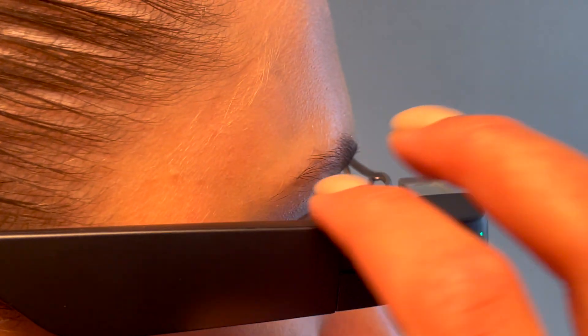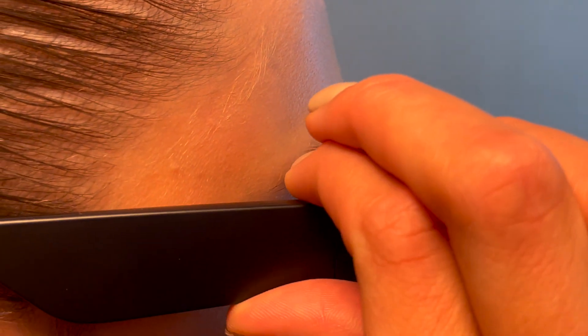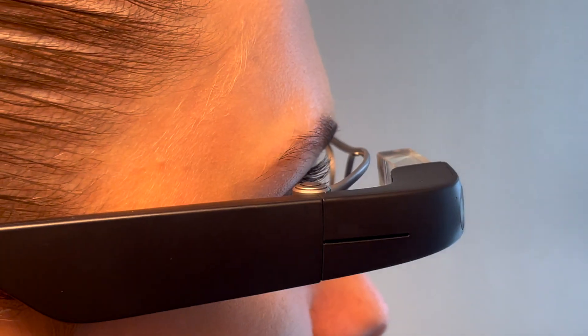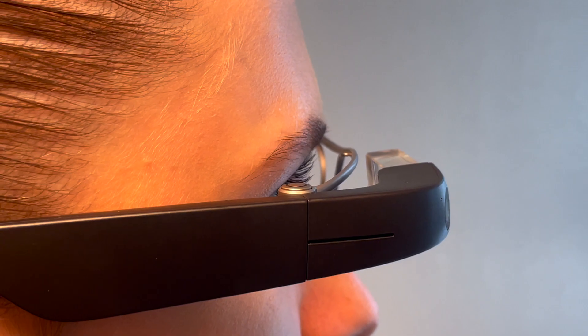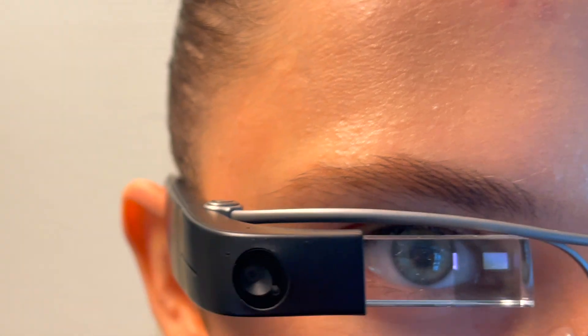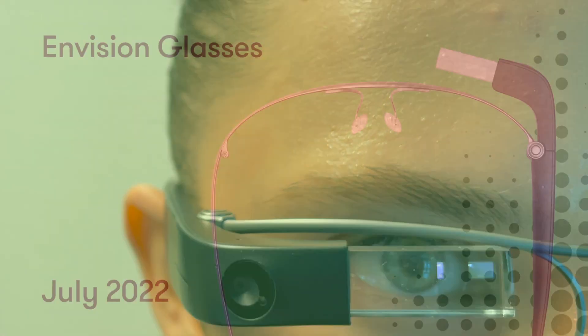Voice commands are now available on the Envision glasses. A user presses the hinge button on the Envision glasses and says: Describe scene.